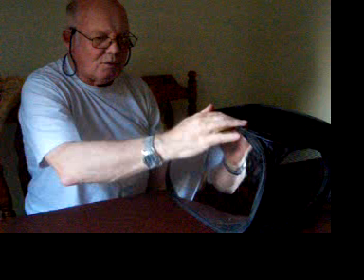Hello, my name is Doug Laybourne and I'm a member of Different Strokes Portsmouth. What I want to do is show you my mirror box. It's designed so that someone who's got stroke damage and can only use one hand can rig it very easily. There we go, and from this I'll show the exercises we do.